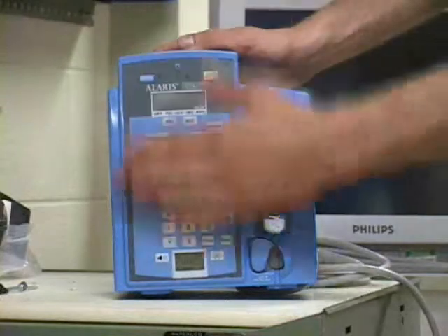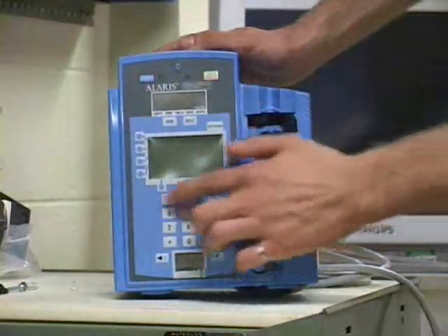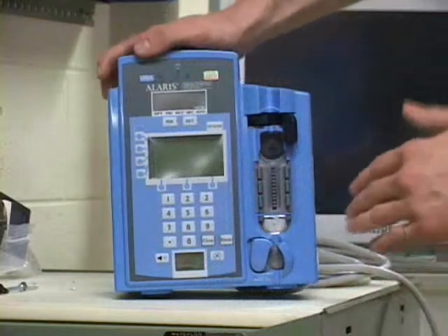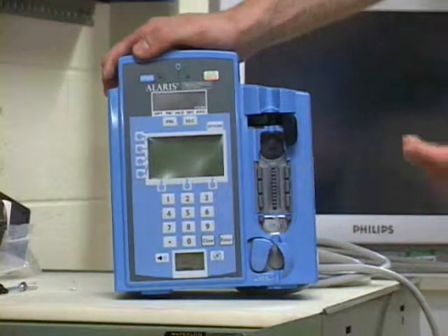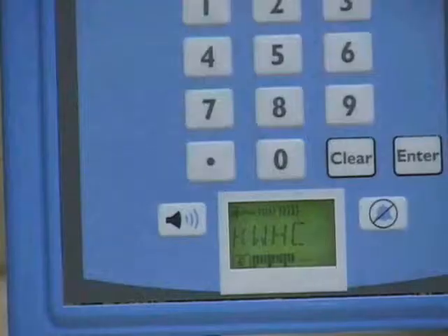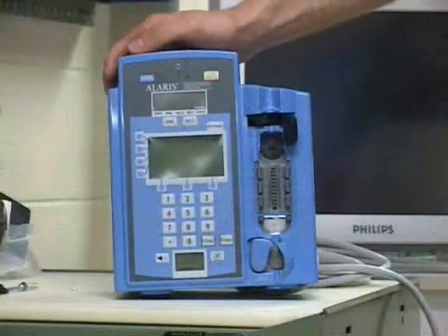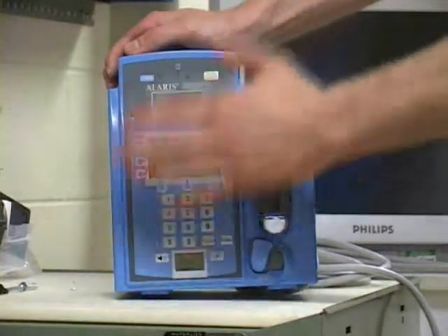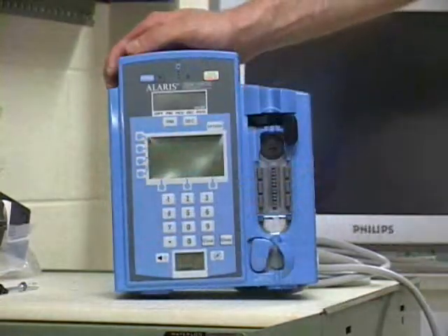This mechanical pump has membrane buttons. All the buttons are covered by one large, flat membrane. The problem with membrane buttons is that they have a crevice that goes around the edge of the entire membrane. This crevice is very hard to sterilize; dirt and grime get caught in it, and it is a perfect breeding ground for nosocomial infections. Virtual buttons, on the other hand, will not have any cracks or crevices like this, making it very easy to sterilize an entirely smooth surface.